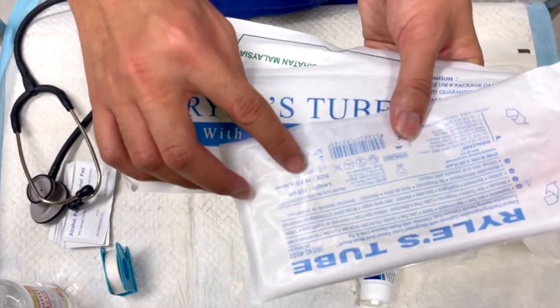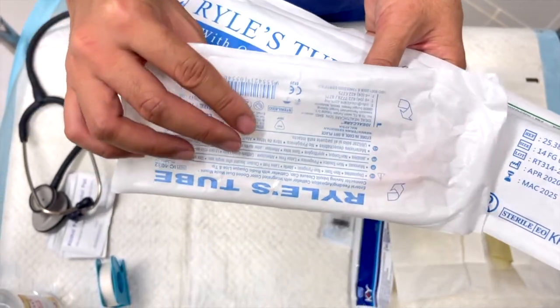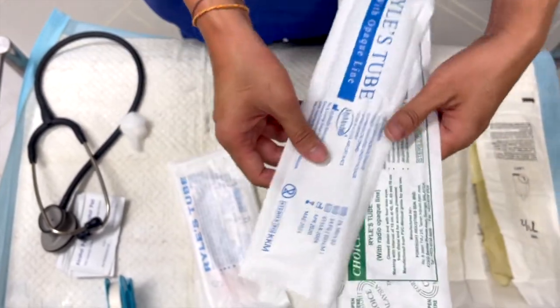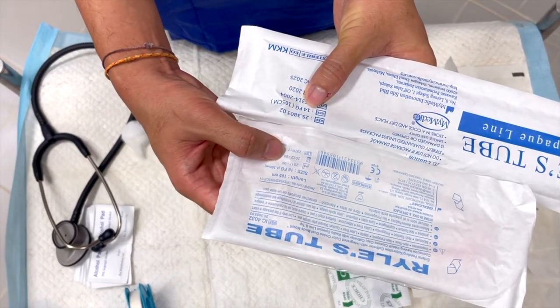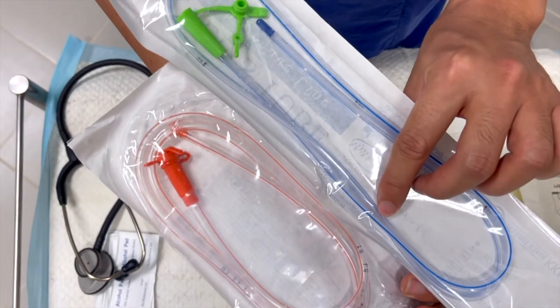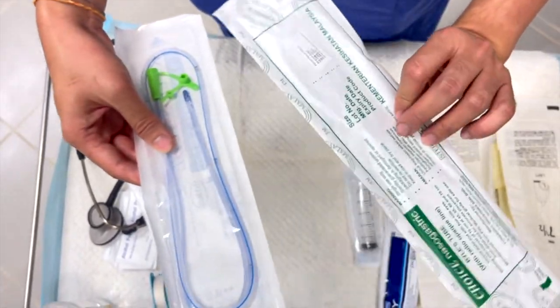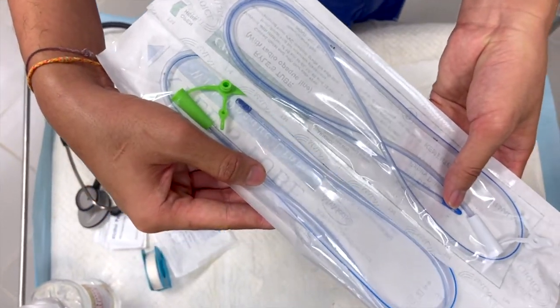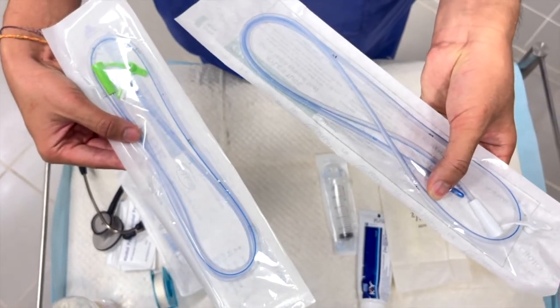As you can see here, this is a 16 French Ryles tube. The bigger the French number, the bigger the diameter of the tube. Here we have 14 French and 16 French — 14 is smaller than 16, so its diameter is significantly smaller. This is a size 12 French Ryles tube, which is smaller compared to the 14 French.